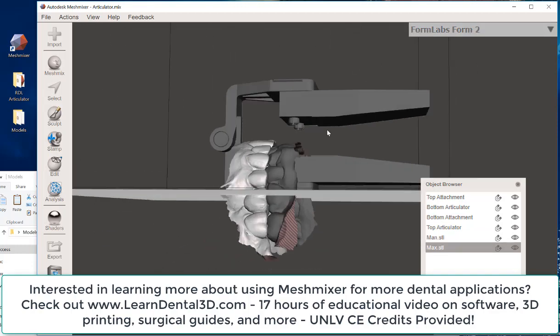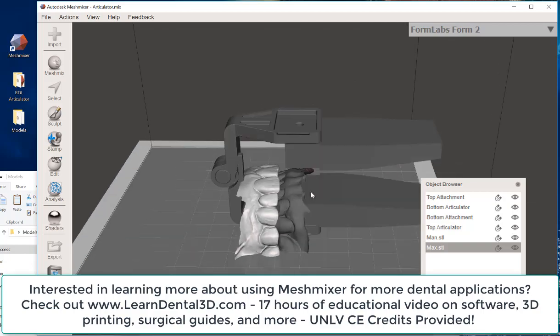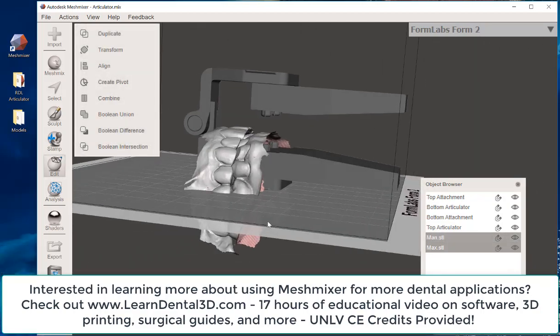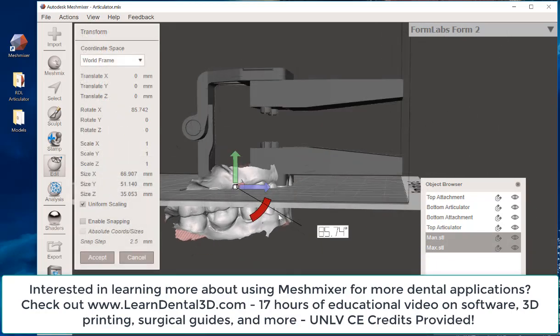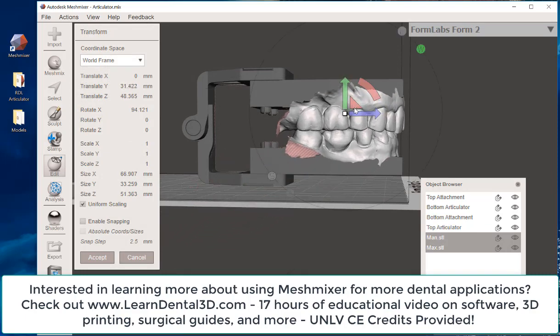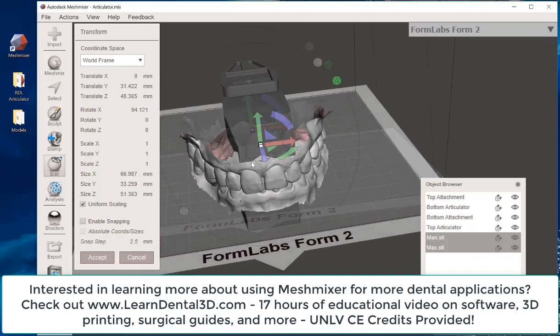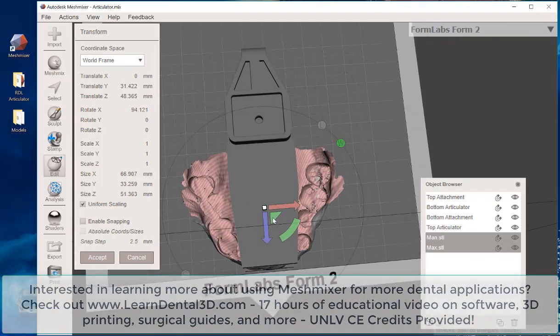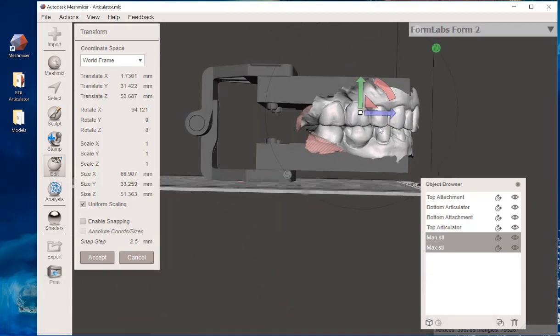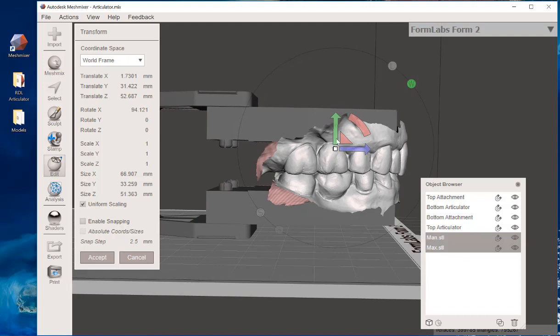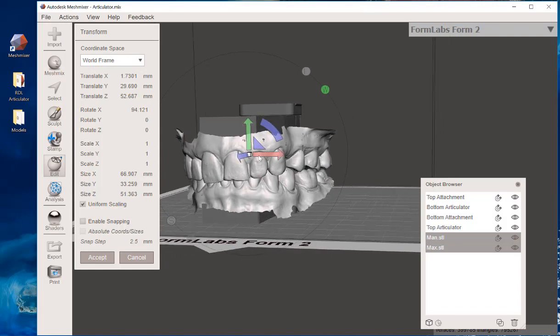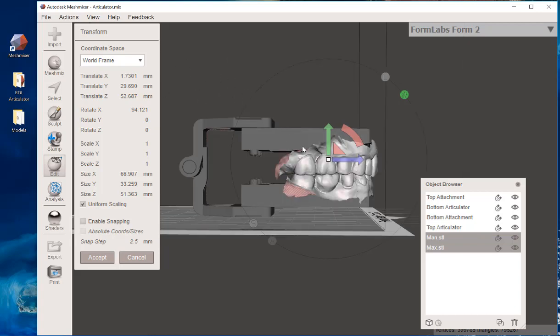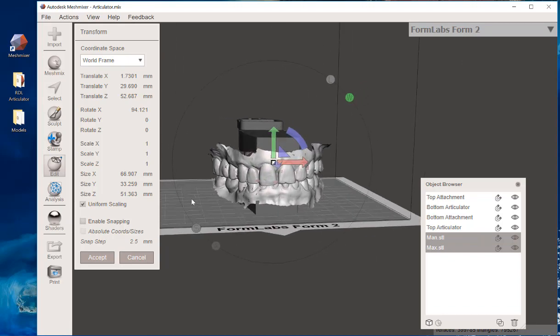Now, just as a review, you can look at my other videos or my online course of how to properly work with these files in MeshMixer. Any time that I'm selected, I've got this kind of light gray look to it. What I'm going to do is grab this little slider here, and I'm going to grab this triangle, and I'm going to move my model out into this position. In this position, we're going to orient the models to about something along the lines of that.